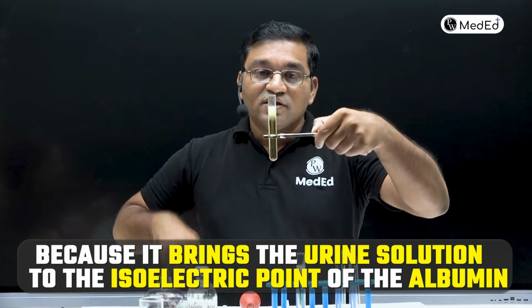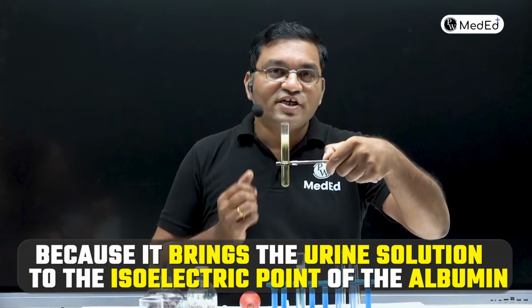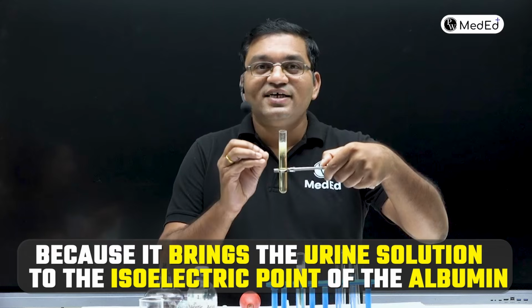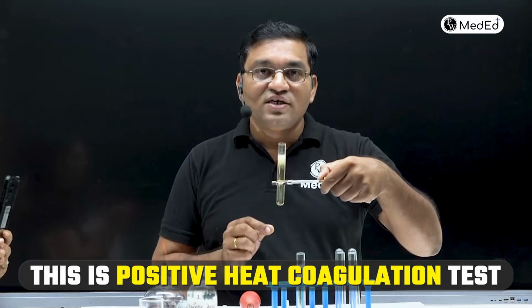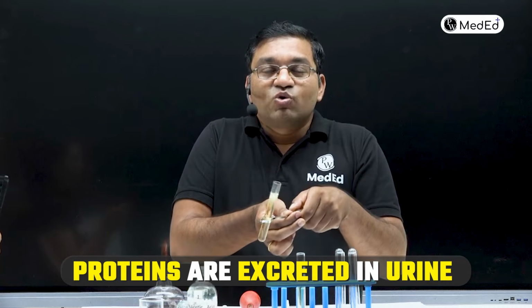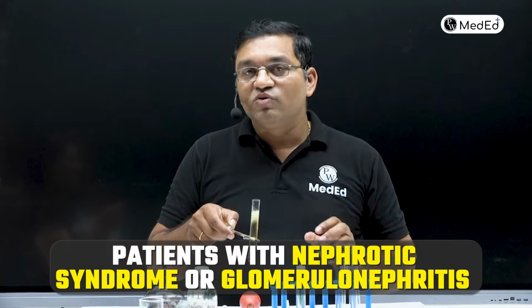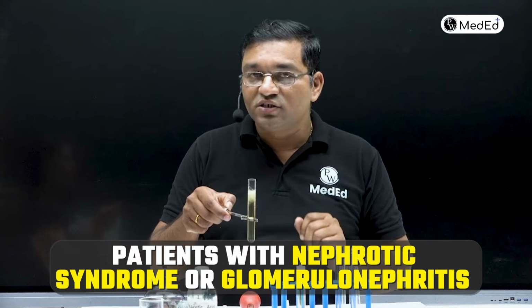Got it? Because it brings the urine solution to the isoelectric point of the albumin, means makes the urine solution slightly acidic. This is positive heat coagulation test, and generally proteins are excreted in urine in patients with nephrotic syndrome or glomerulonephritis, when kidney disease is there, when there is damage to the glomerulus.